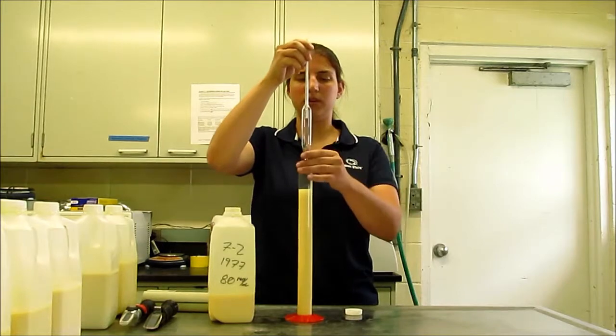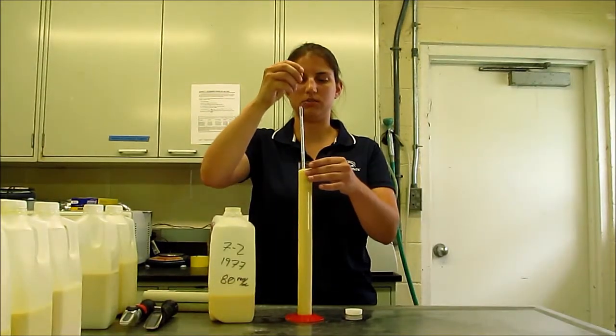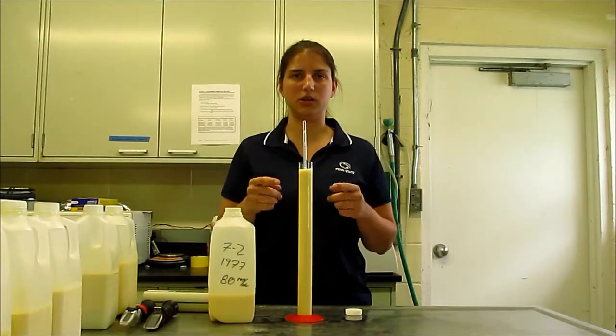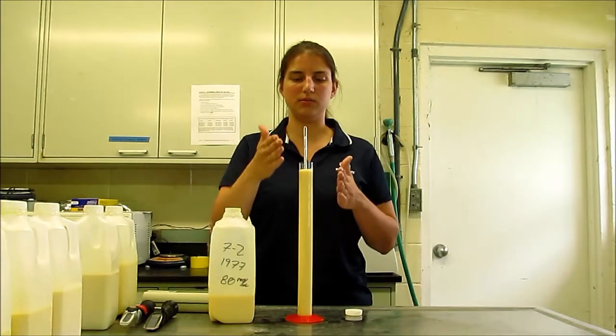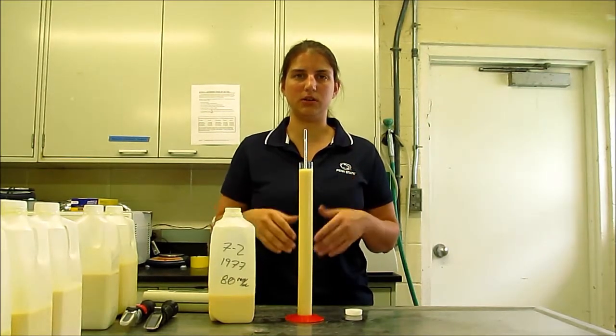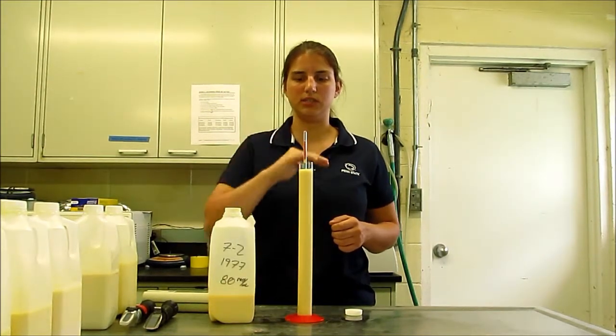And then you simply drop the colostrometer into the colostrum inside the cylinder and wait until the colostrometer stops moving. Sometimes it will move up or down a little bit, and then you get your final reading once it stops.